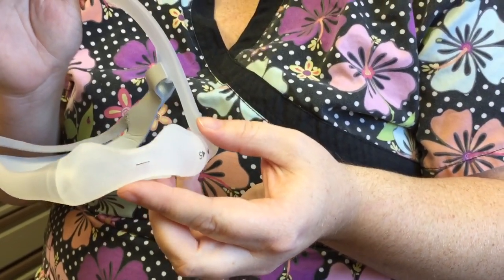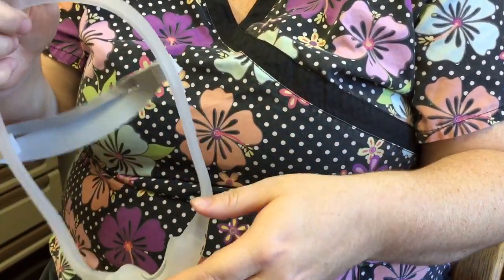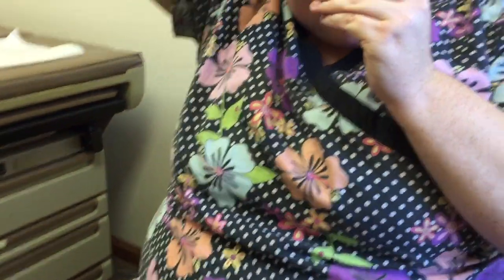Let me show other patients what it looks like — the nose pillow piece comes off and goes back on easily. It sits right below the nostrils and does not go into or over the nose. The hose goes right on top, so you don't get tangled up while sleeping and it doesn't pull at the nose.